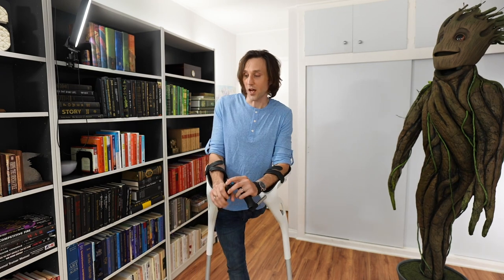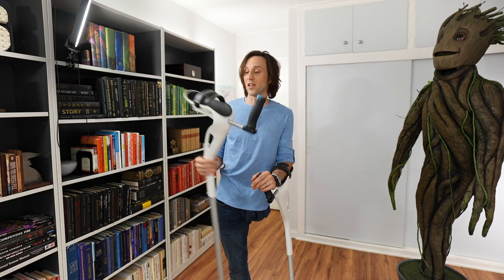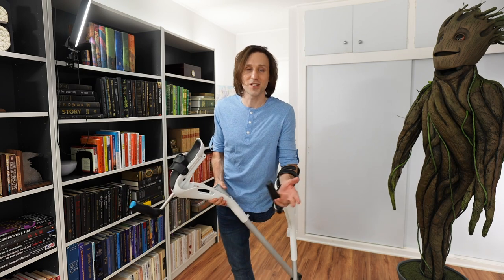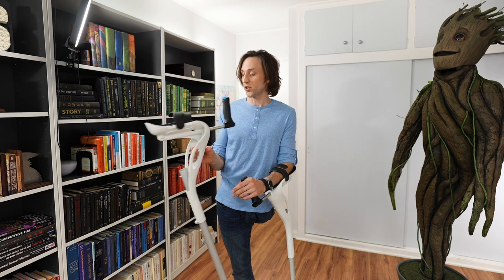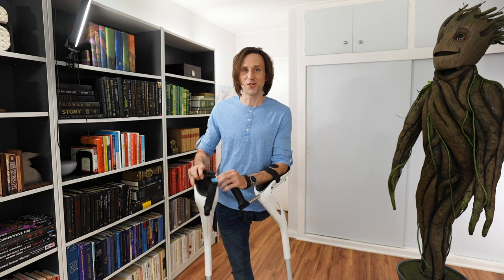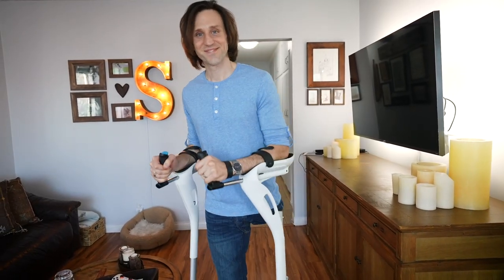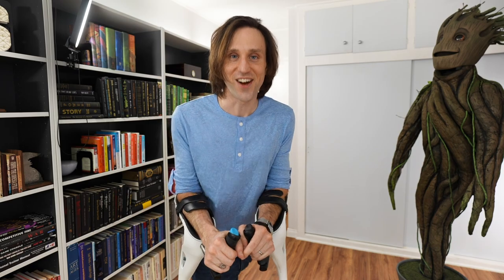So I'm really impressed. I applaud MD Crutch for inventing a crutch that, amongst many crutches coming to the market — we live in like the golden age of crutches, and you've probably seen some of my other crutch reviews — this is one that, in my opinion, is truly unique, truly new, truly different. And for that, I applaud MD Crutch for bringing this to market. For my other crutch reviews, check out the Crutch Tips playlist on YouTube.